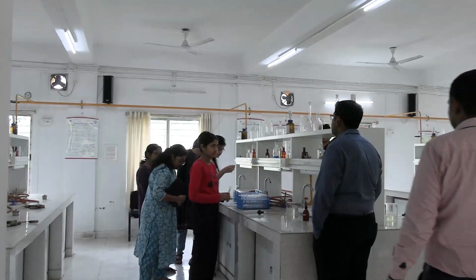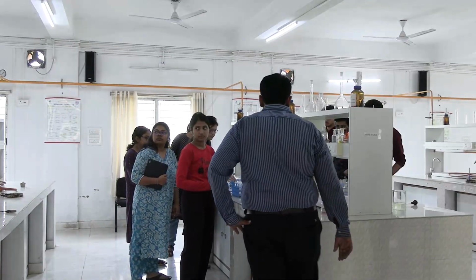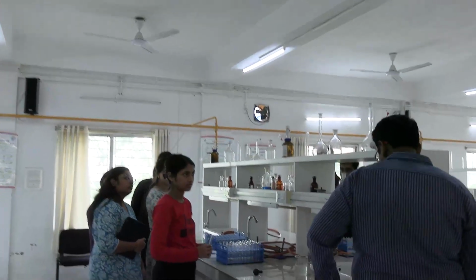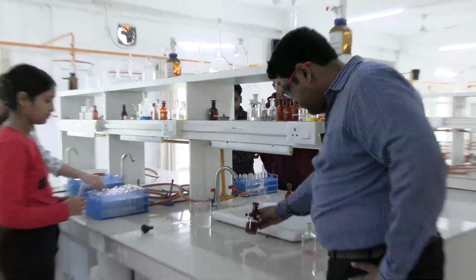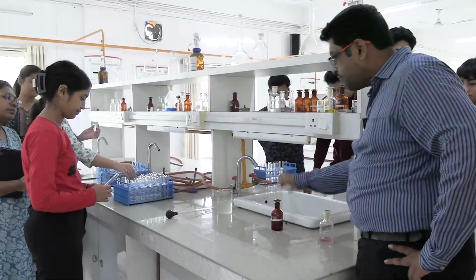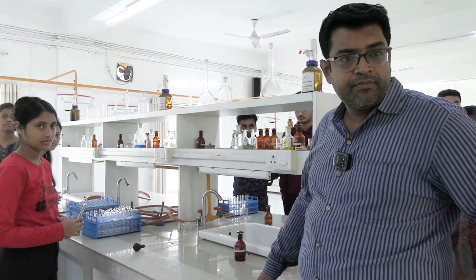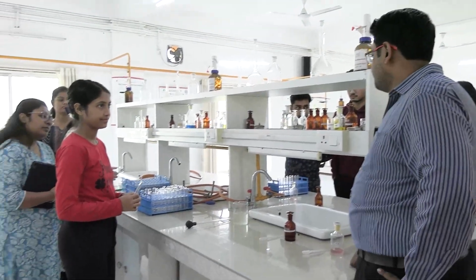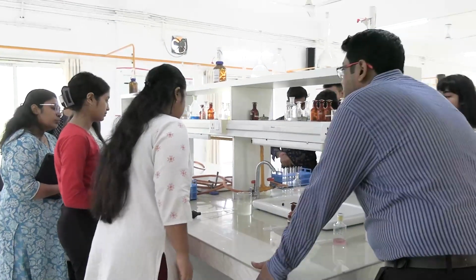Okay, so first we are going to do our protein detection in urine, and we are going to do the heat and acetic acid test and the sulfosalicylic acid test. So what are you supposed to do? You are supposed to fill up with the sample first.